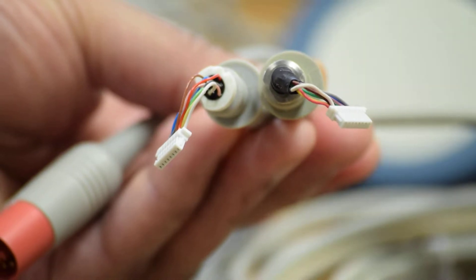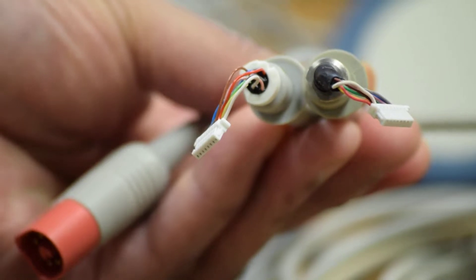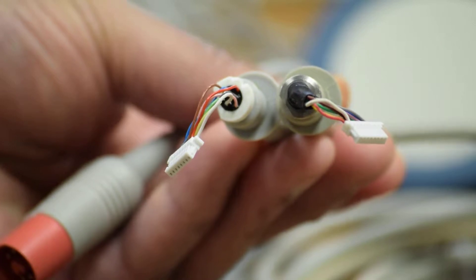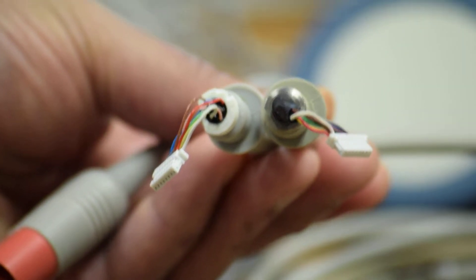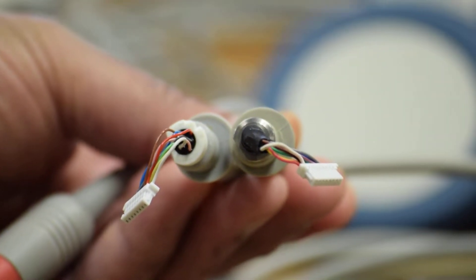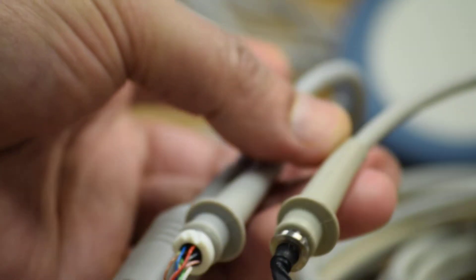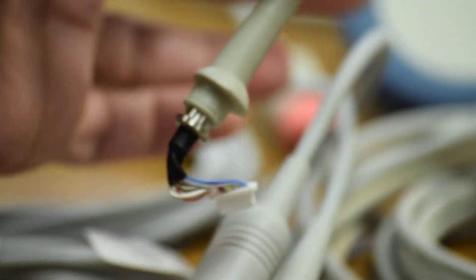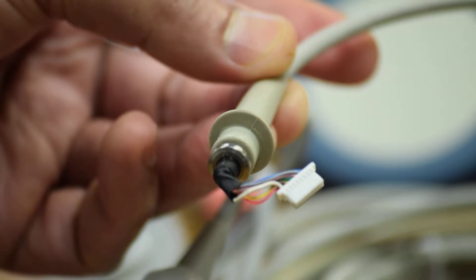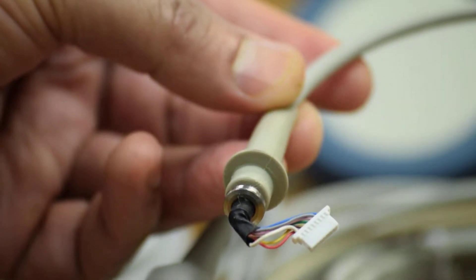The original strain relief has black potting material at the center, which keeps the characteristic impedance in control. It is drip-proof — moisture cannot intrude inside the transducers, causing havoc to the assembly components. The metal insert on the third-party part is not grounded, picks up electromagnetic signals and spurious RF, and adds to intermittent problems.